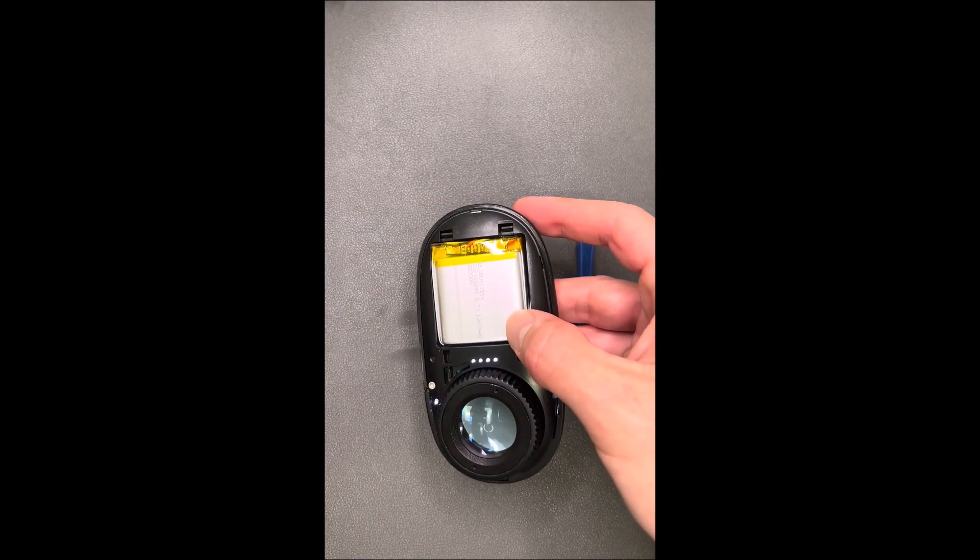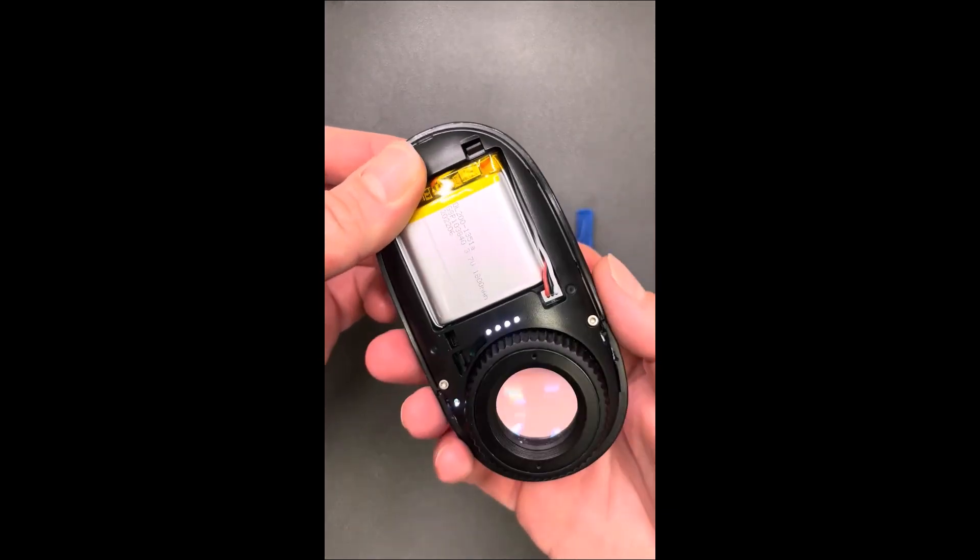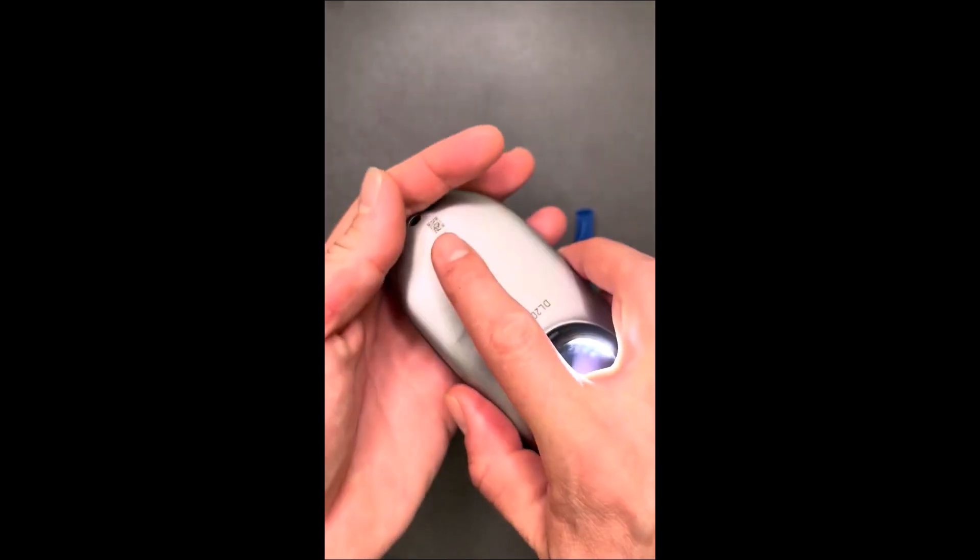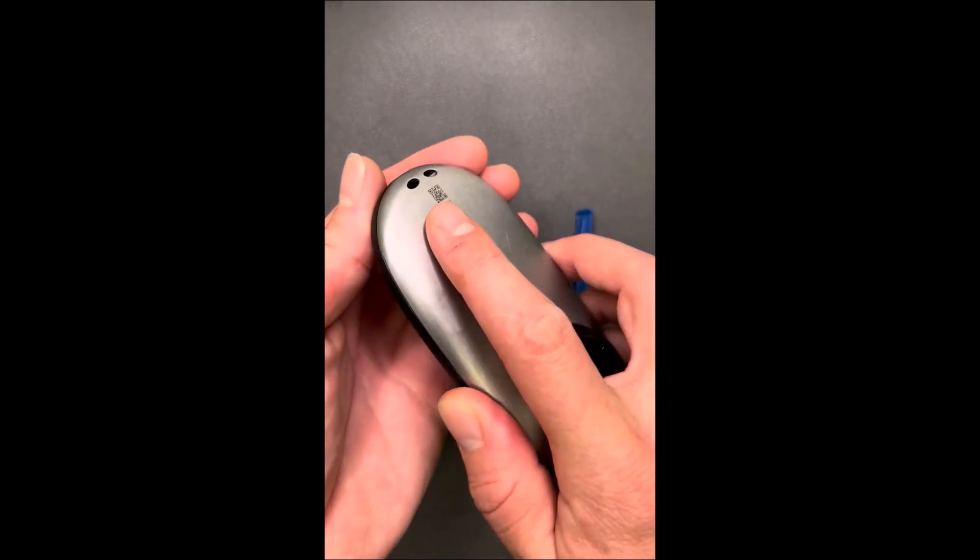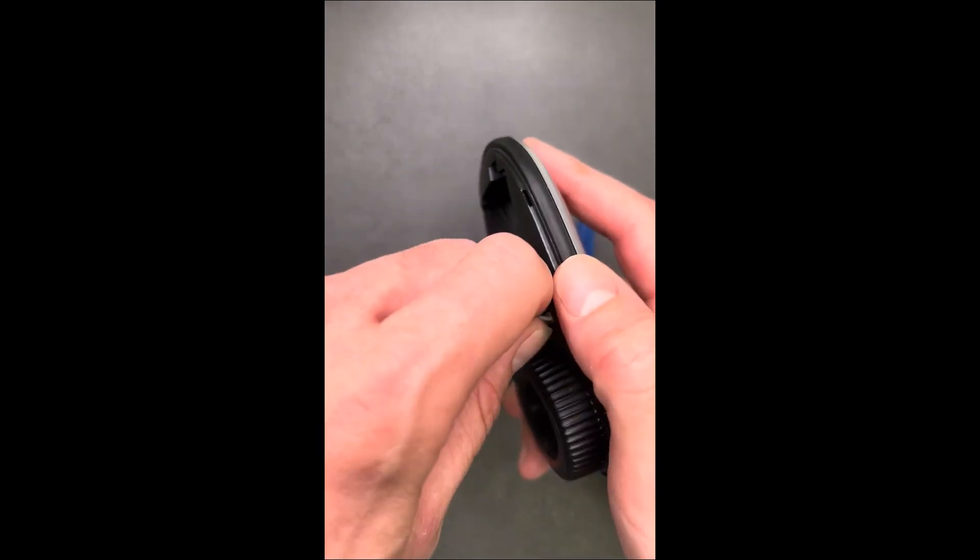Then, just place it to the side. The old battery may require a small amount of pressure to release it from its tray. If needed, you can hold it in your hand while giving a slight tap to the opposite side. Then, simply lift the old battery while disconnecting it from the device.